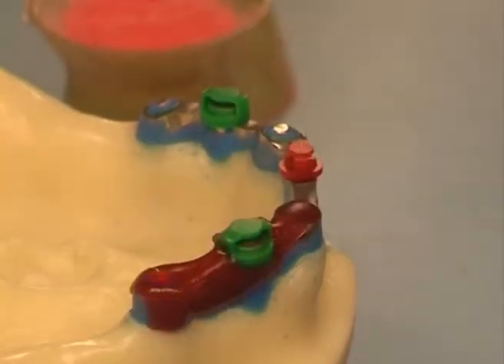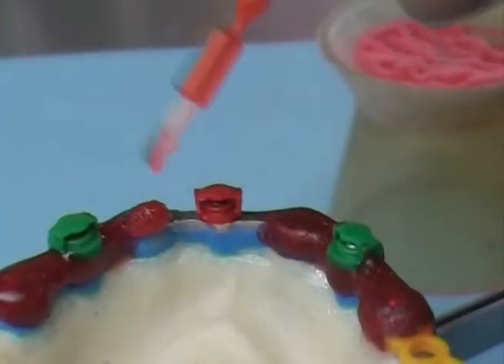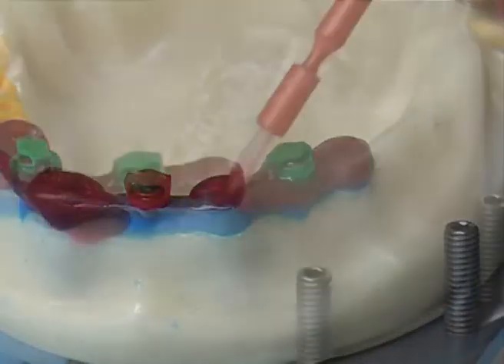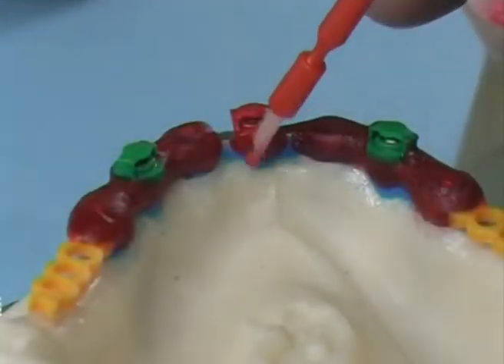Start to build up the overstructure itself using self-curing resin to be distributed in sections of it. Incorporating also the boxes, and then wait for every section to cure in order to proceed joining these pieces together in order to define the whole overstructure shape.